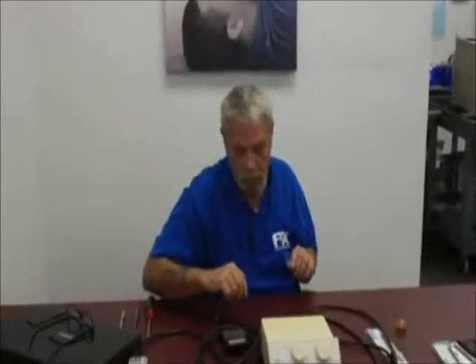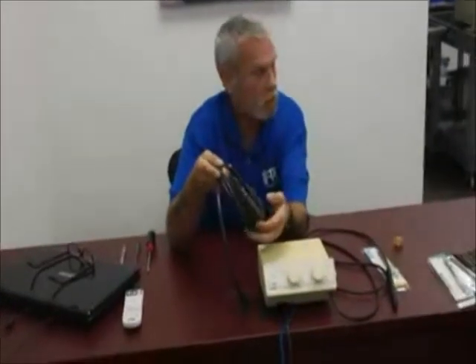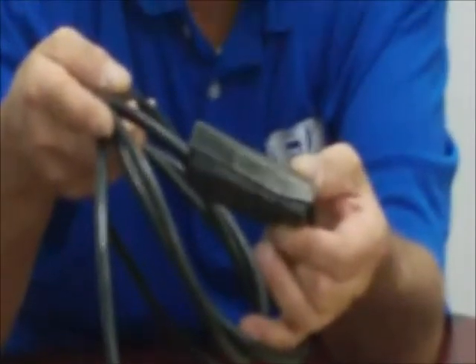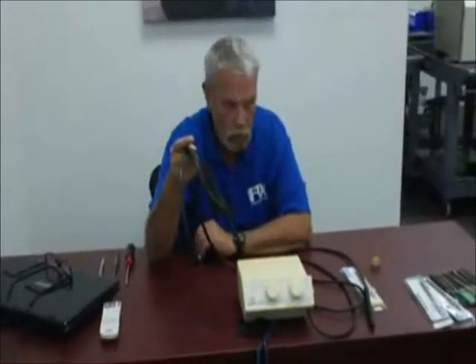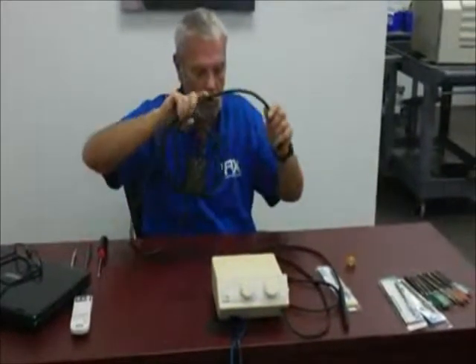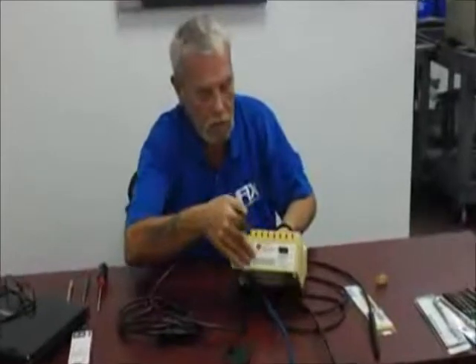Your next component is the foot control. Very simple — essentially it's an on/off switch and a spring-loaded pedal. When you activate the switch, you're turning the ultrasound on in the machine to make it usable in the oral cavity. Foot controls are usually pretty durable. This is an industrial foot control — it's the same type used to cut lathes on and off, just a different application.